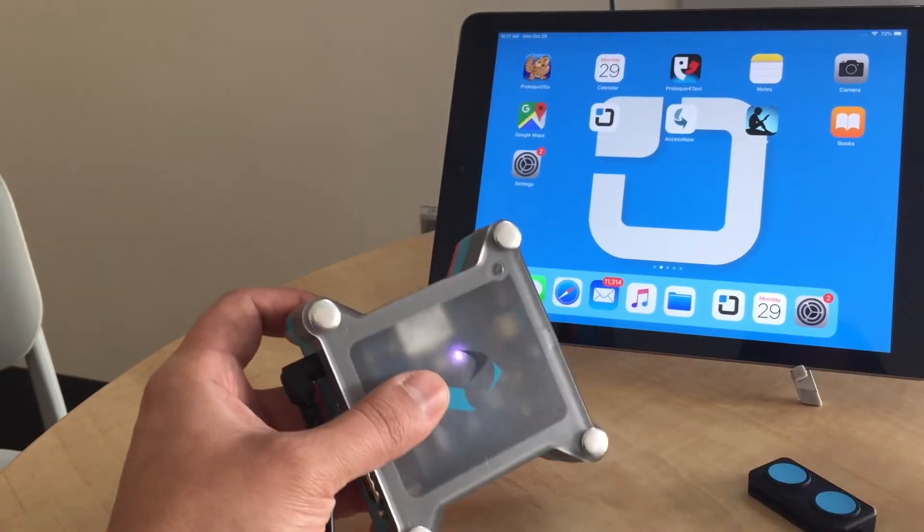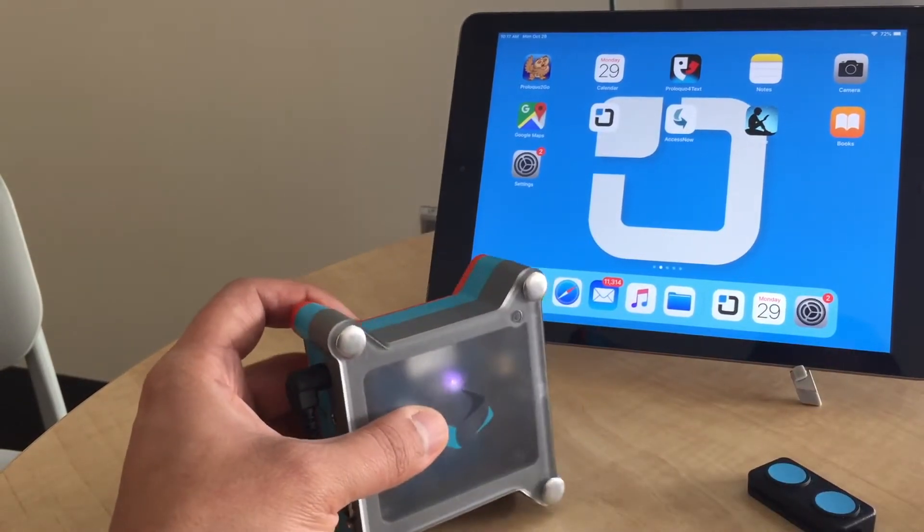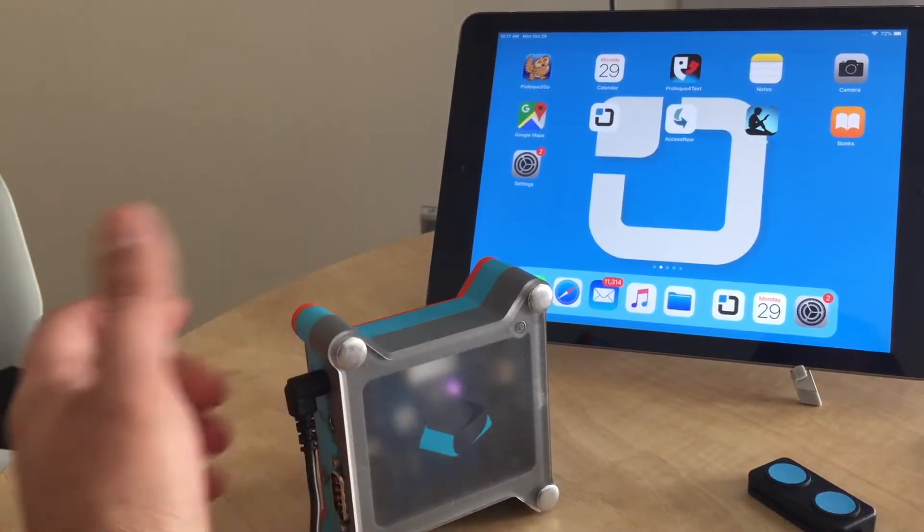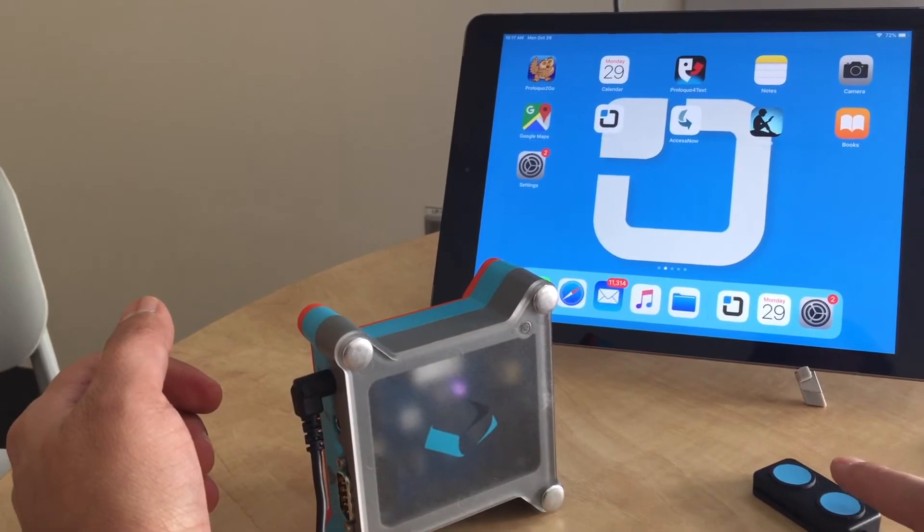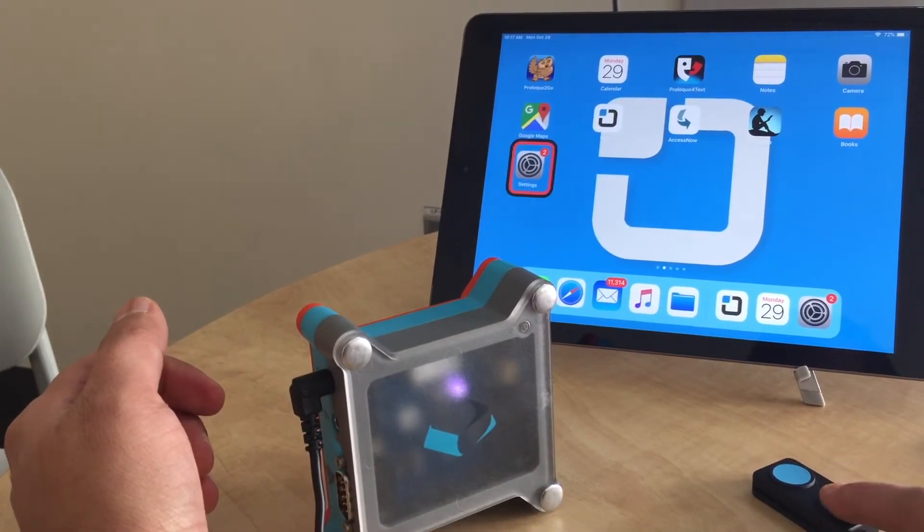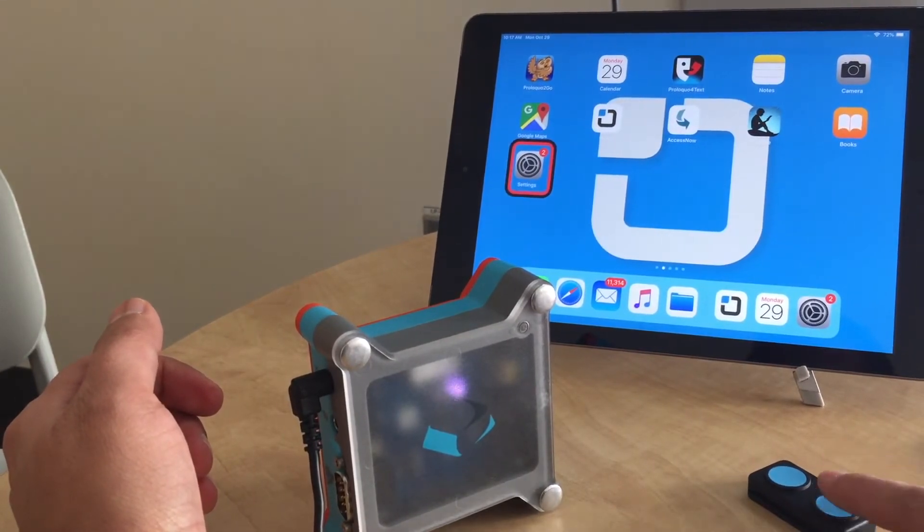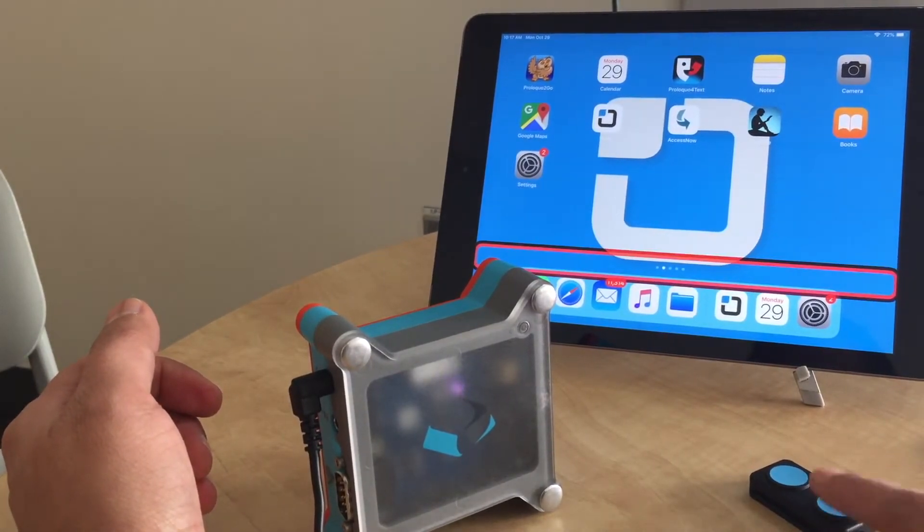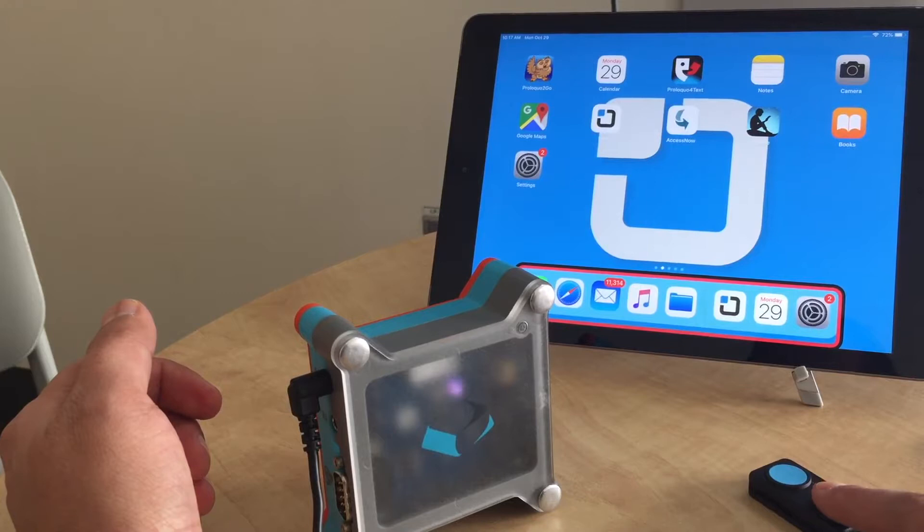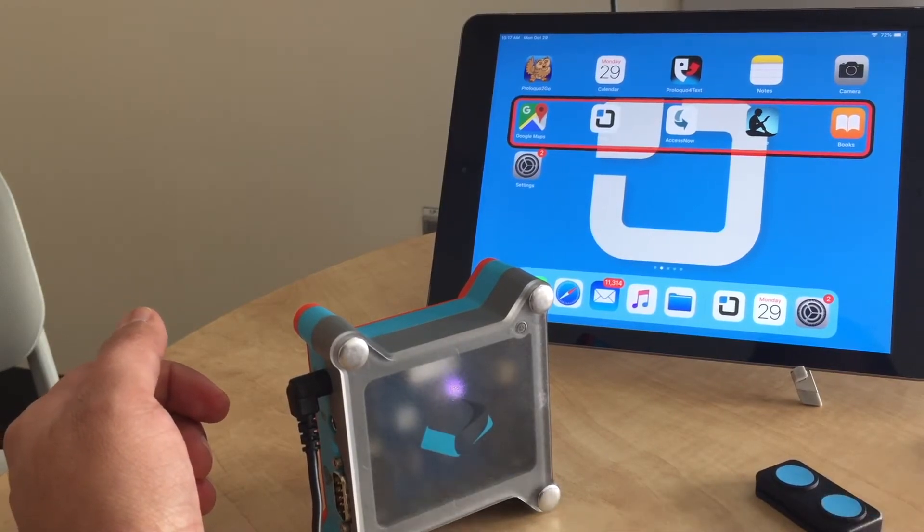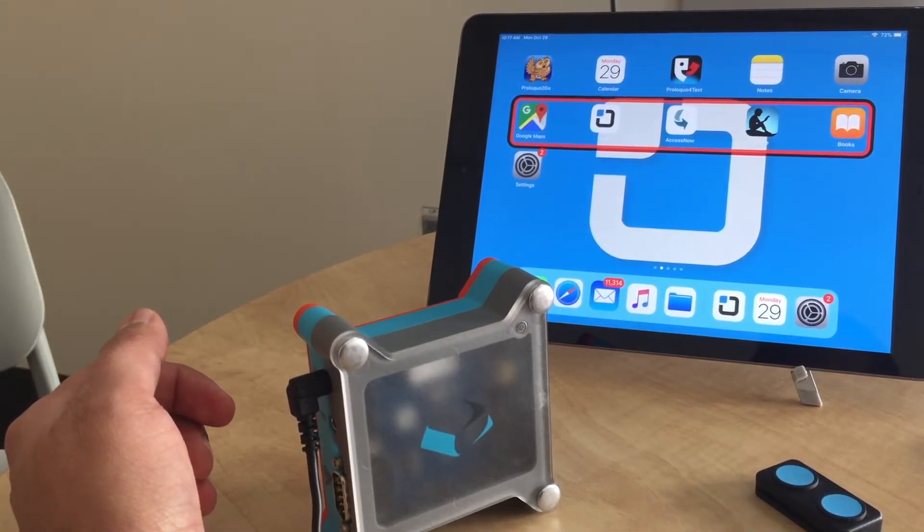That's going to ensure that you are not in that mode at all. Now you can see the difference - when I press, that's when my switch is being accepted by the device. So that means now we are in the right mode.